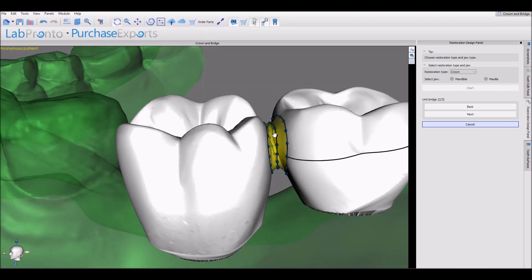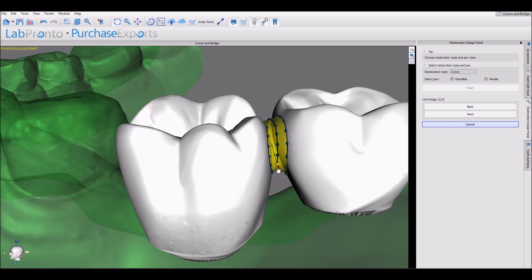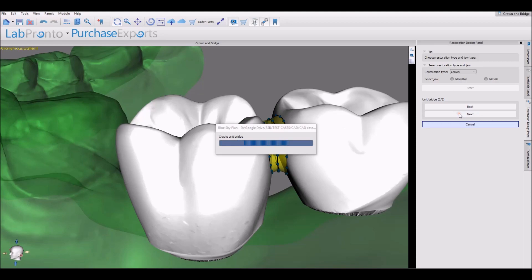We can modify the central circle, and if we hold down the Shift key, we're moving the entire circle in any direction. If we hold down the Control key while using our left mouse button and moving the mouse backwards or forwards, we're enlarging or shrinking the middle surface area of the connection. Once we've completed modifying the connection itself, we press the Next button.